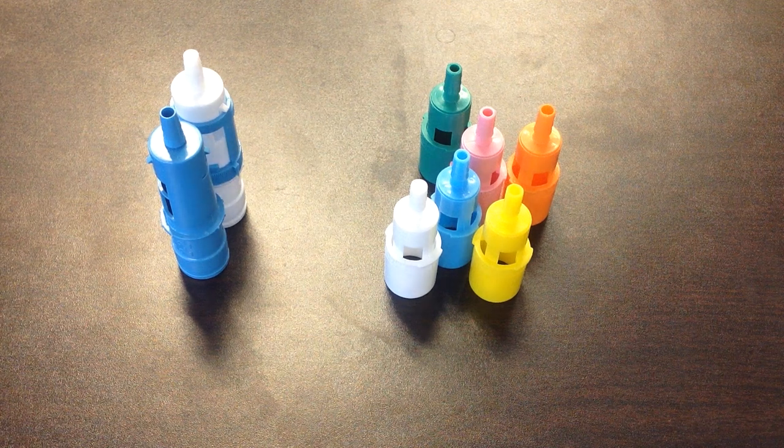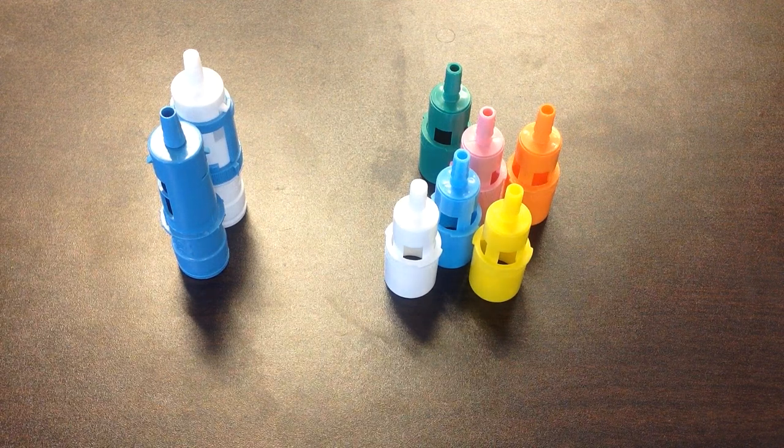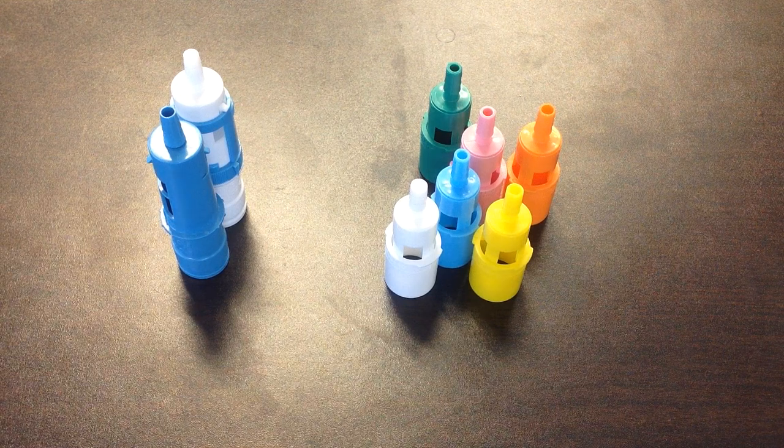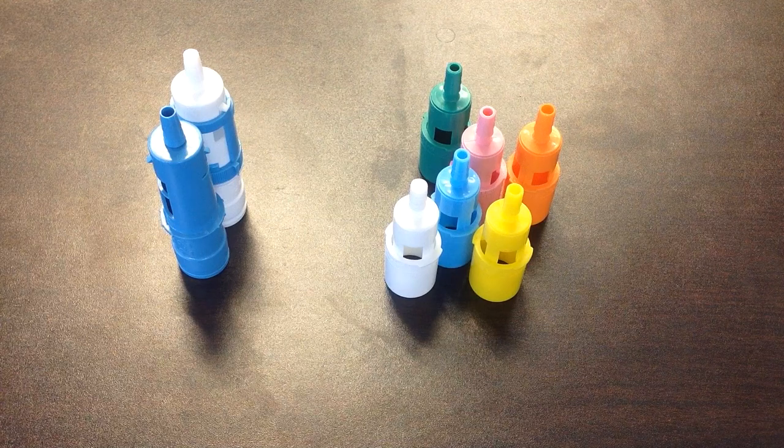The next oxygen device is called the Venturi mask. This works off the Venturi Bernoulli principle of a jet of gas going through a small orifice causing a decreased pressure on the walls.